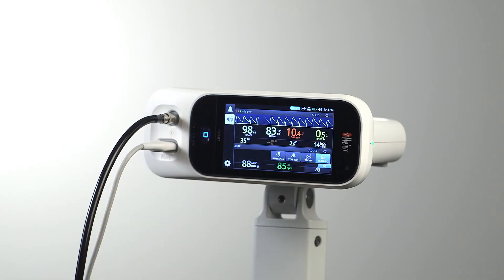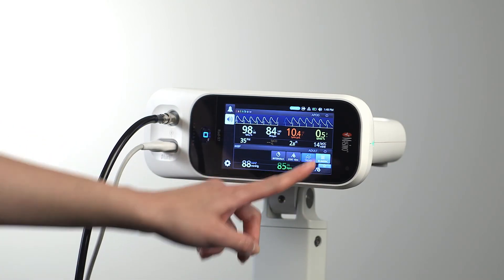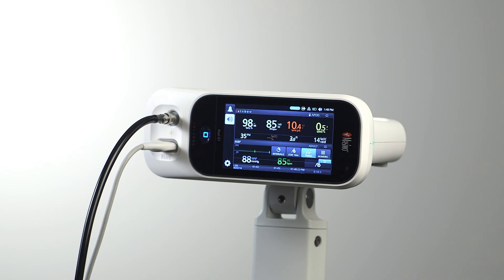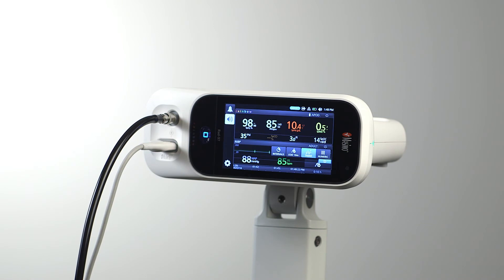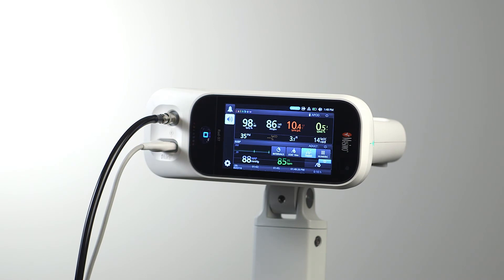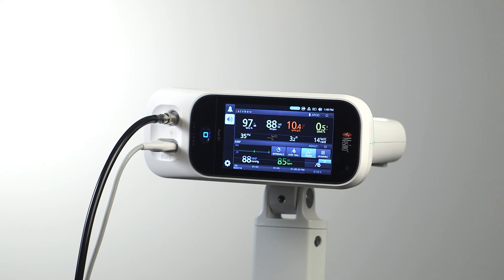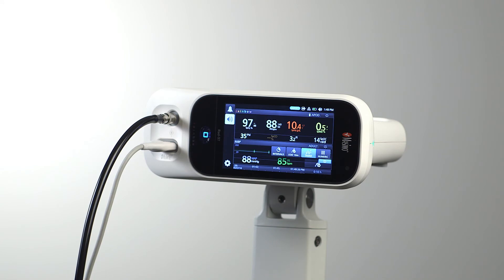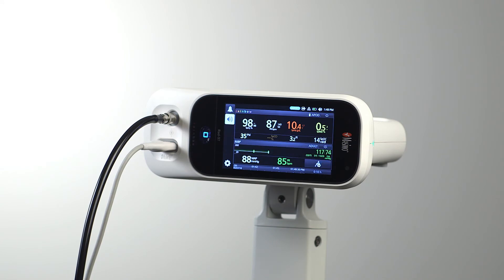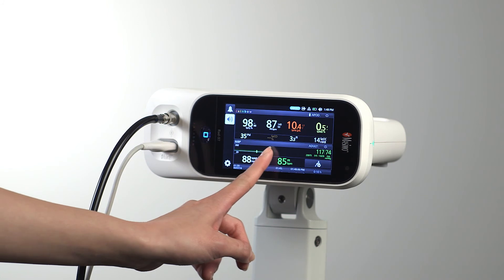NIBP measurements can be displayed on the RAD 97 in numeric or trend view. In trend view, clinicians can use the multi-touch screen to adjust the range of trend time displayed and scroll through up to 96 hours of parametric data.